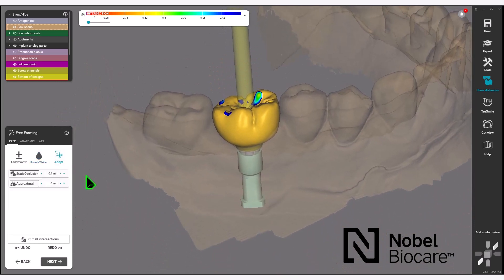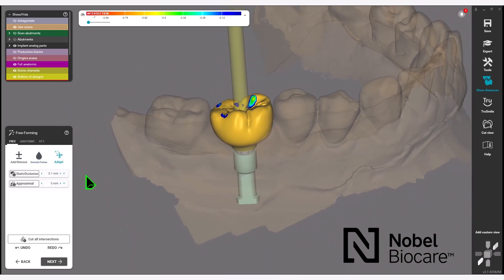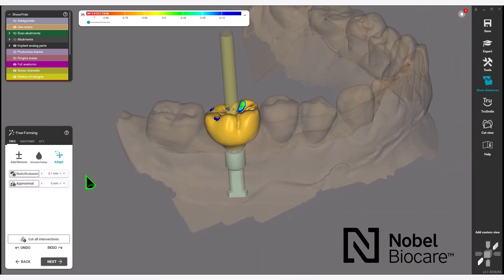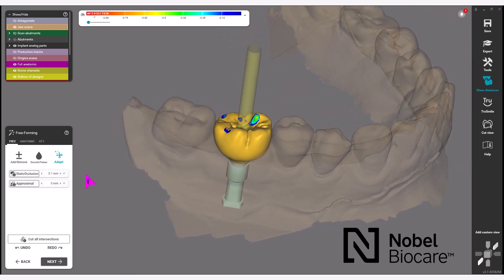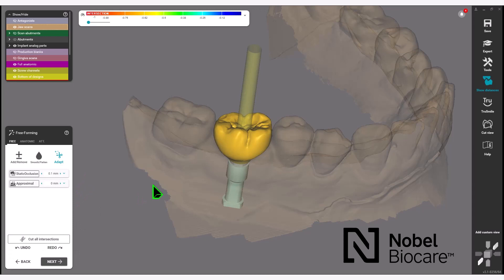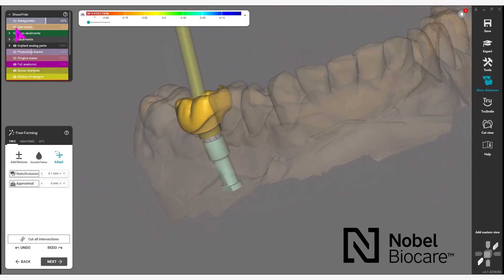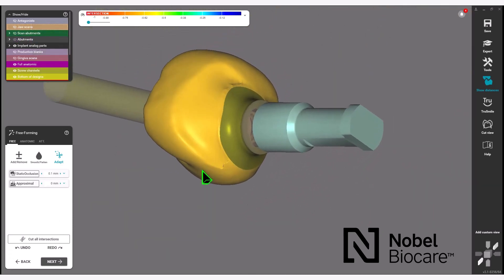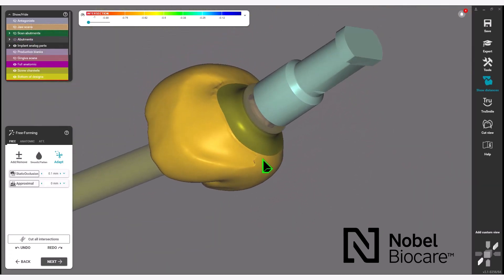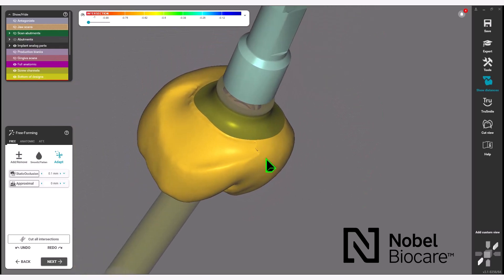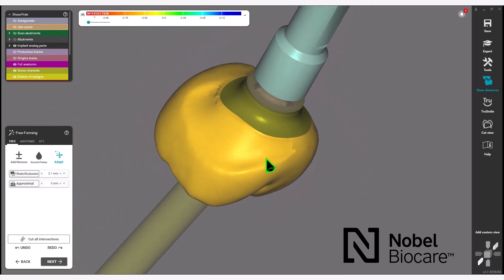For adjusting contacts, you have your static occlusion and your proximal contacts. You can set those dimensions and click Cut All Intersections. You may also turn off the jaw scan to do further editing under the emergence profile, where you can see it has cut to the soft tissue.